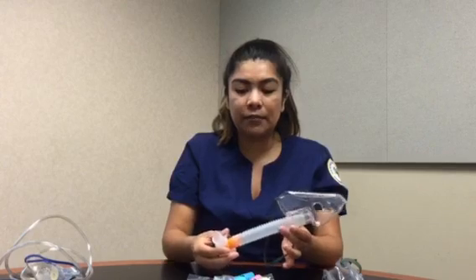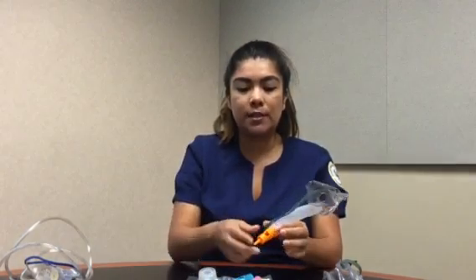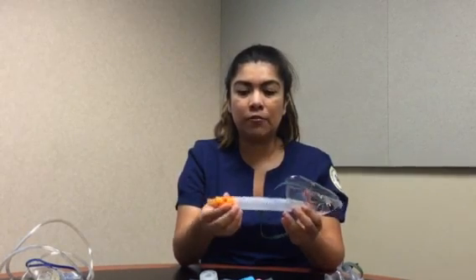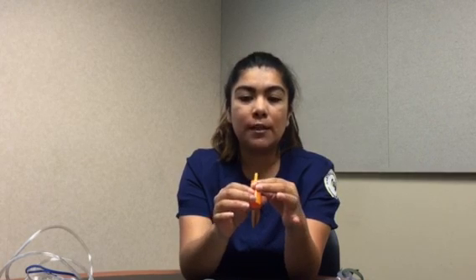Now on this one, the difference is that it comes with some ports attached to it, because again, it's a fixed FiO2. Therefore, these ports are going to give you your fixed FiO2. As a guide to know which flow ranges to use on these ports, underneath each one it supplies the flow range for the gas and also the FiO2 percentage. So for example, on this one, it says 20 liters per minute, and it's 50%, okay?